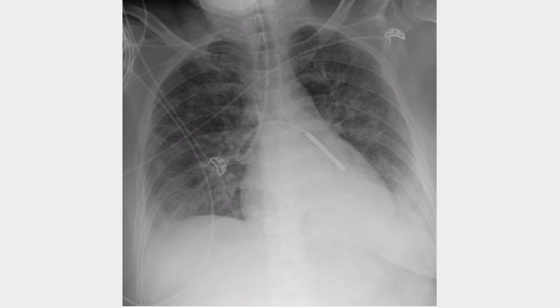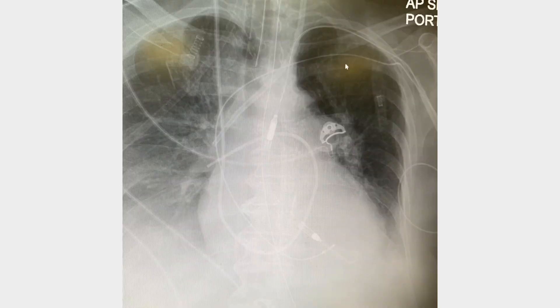This is another X-ray, really similar. The tube is coming to the carina, coiling, and going into the left mainstem bronchus. You can see this opaque material — this is seen in certain types of NG tubes, mainly in tube feeds or small soft NG tubes, because they have a stylet to insert them and this opaque material makes them easy to identify on X-ray. These are mainly for nutrition and feeding, not for suctioning.